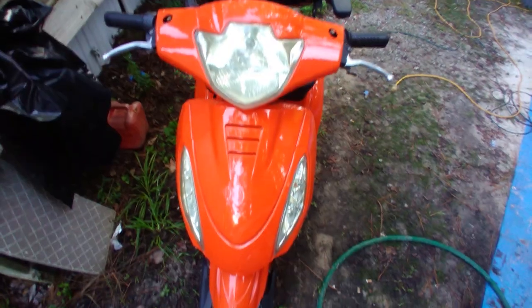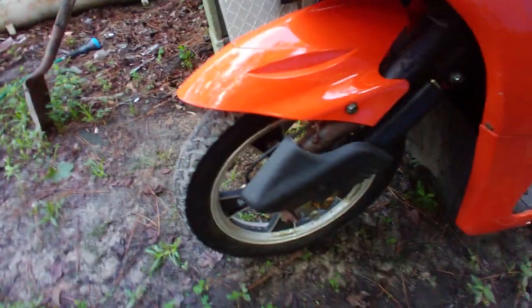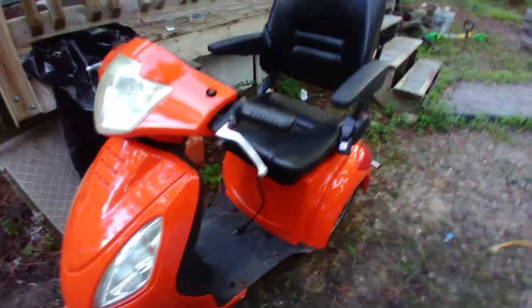She does not like driving the golf cart because it's a big step up into the golf cart, so she found this little mobility scooter. She used it for a week, was super happy with it until it didn't run anymore.